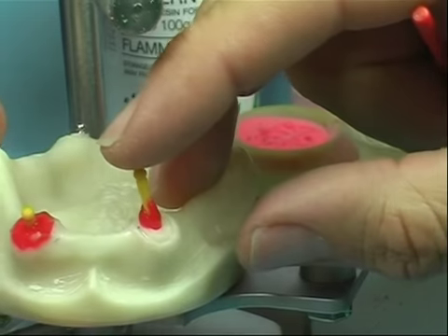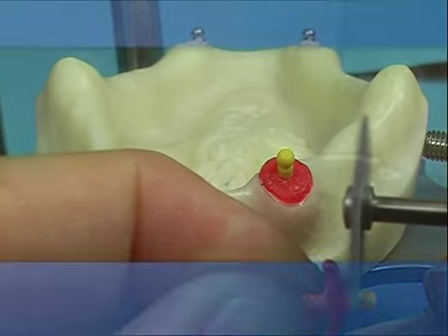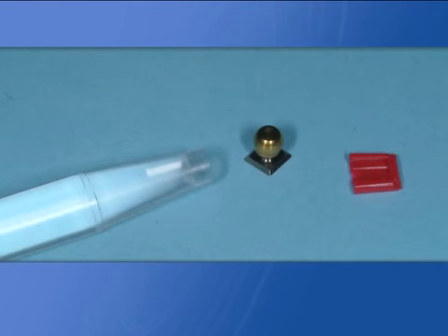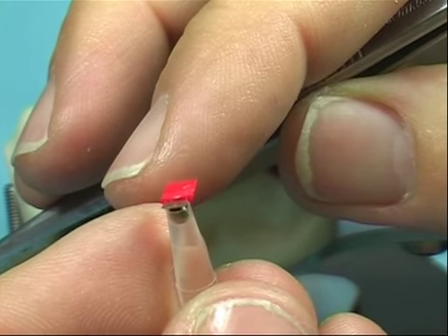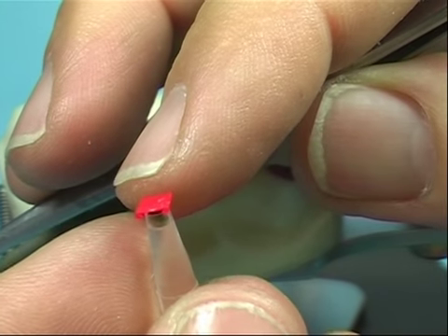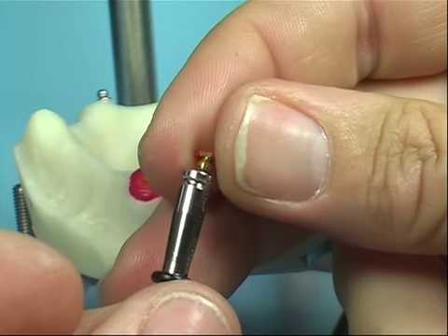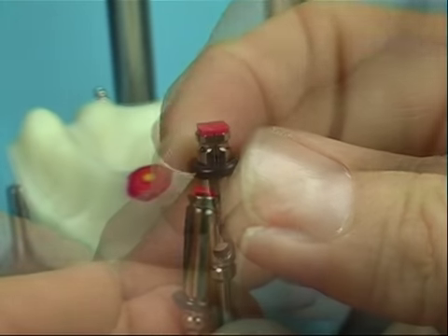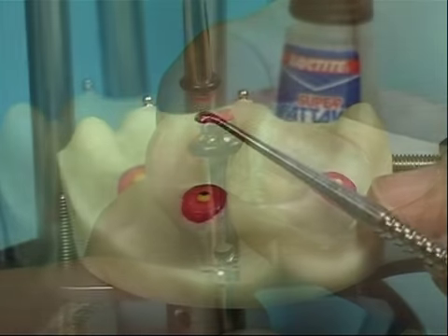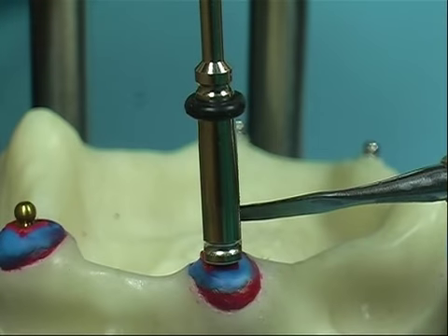Techniques to prepare the root cover are as previously illustrated and can be adjusted by the technician as desired. Slide the sphere into the castable base and position it in parallel using the parallelometer key. Pull the castable base on the cover to secure it in place.